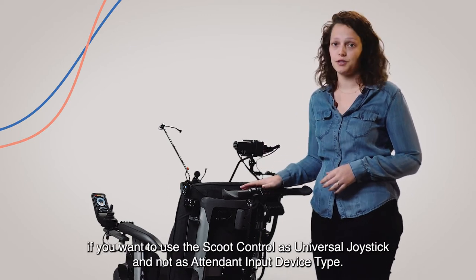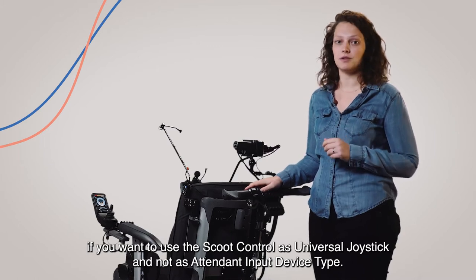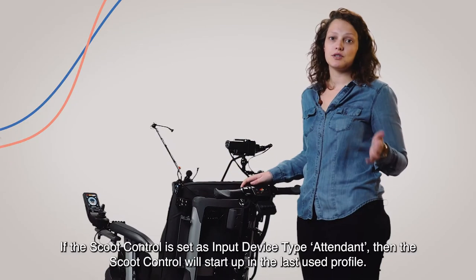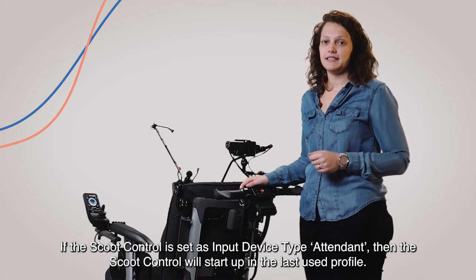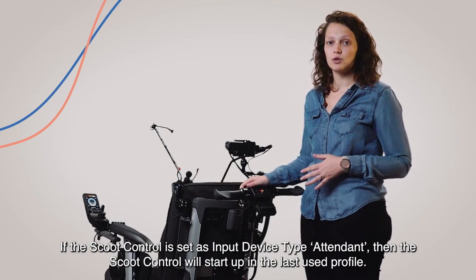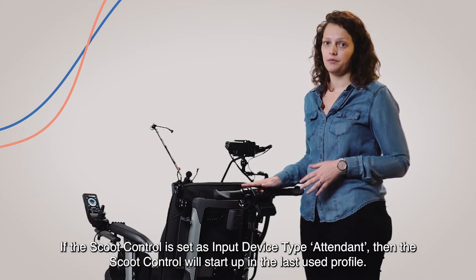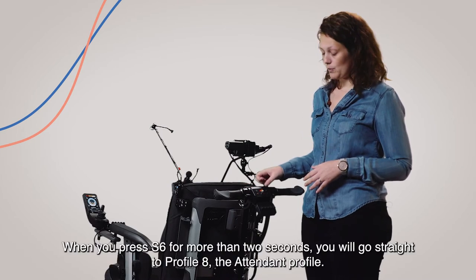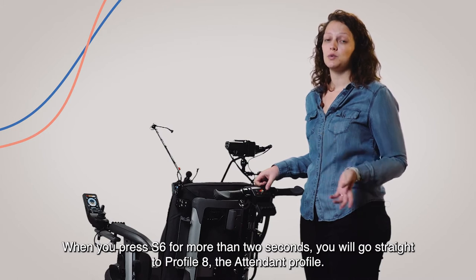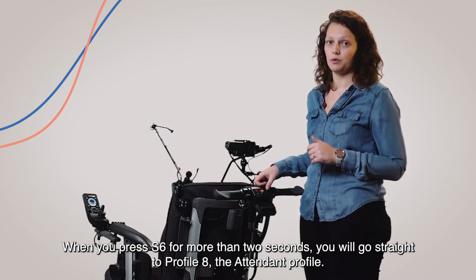The fourth and fifth parameters are only useful if you want to use the scoot control as a universal joystick and not as attendant input device type. If the scoot control is set as input device type attendant, then the scoot control will start up in the last used profile. When you press the 6th button for more than 2 seconds, you will go straight to profile 8, the attendant profile.